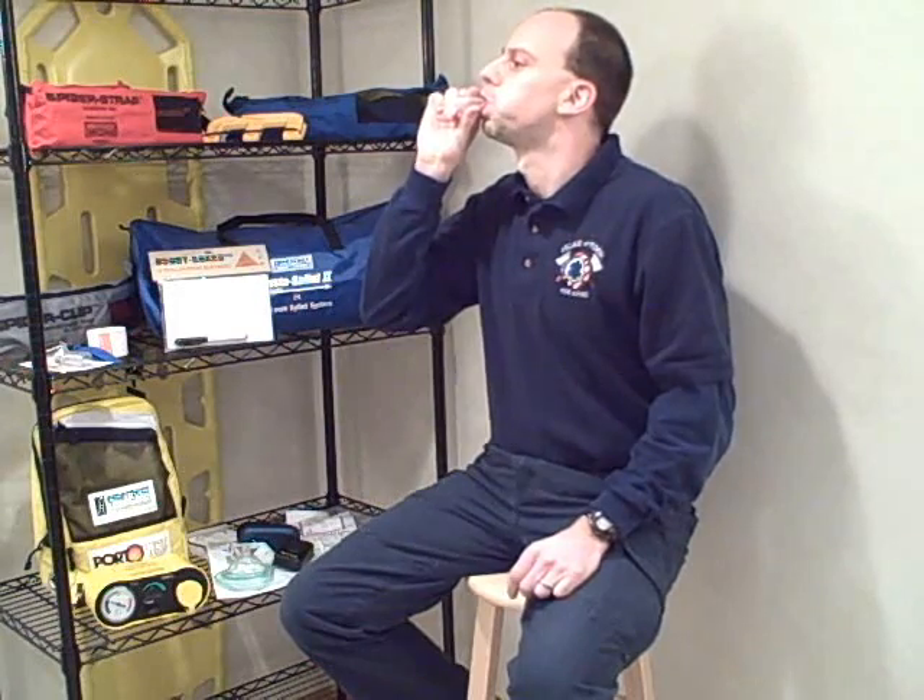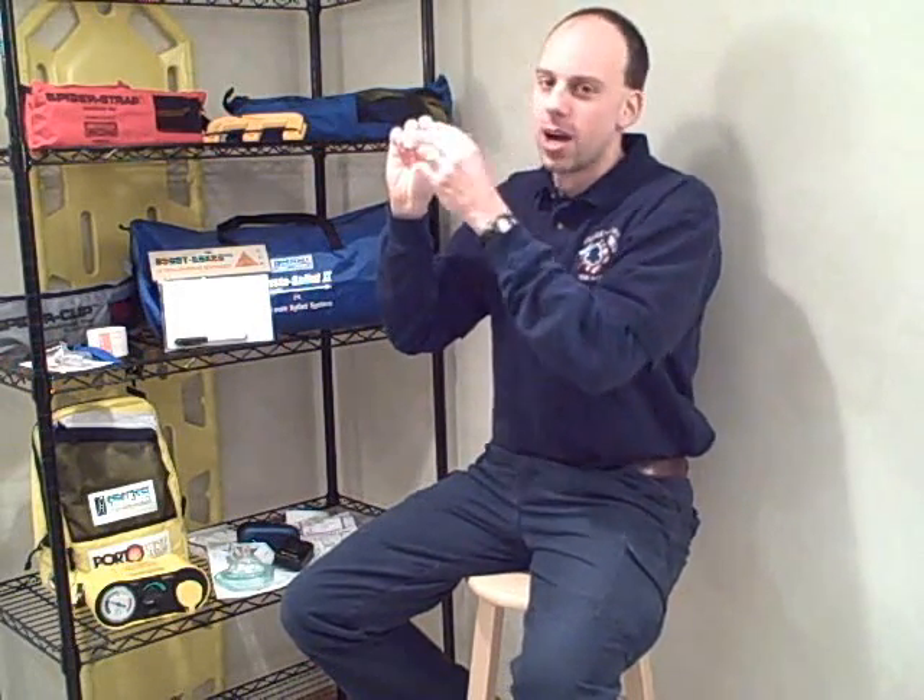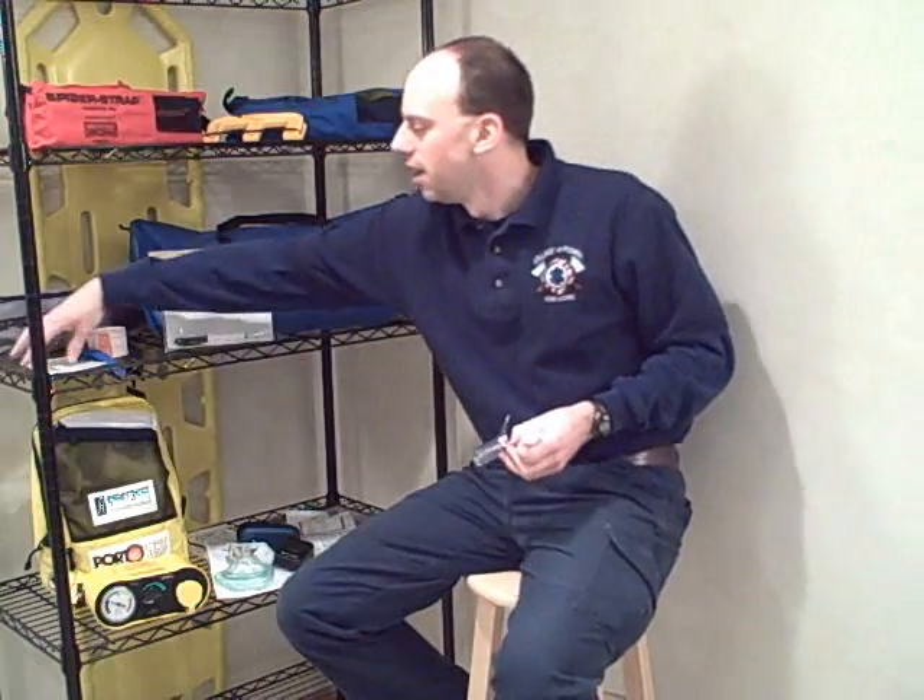So again, I'll show you how it goes in — just like this. And when I exhale, I can feel that air pushing out the sides and hitting my cheeks. This is called the Numask, it's spelled N-U-M-A-S-K, and you can find them on the internet at numask.com. This is the typical pocket mask, and the Numask is something different. Maybe give it a try and see which one works best for you.